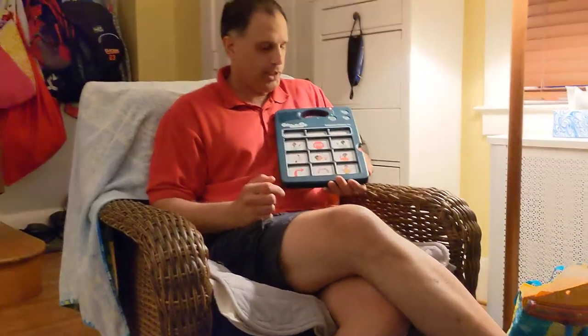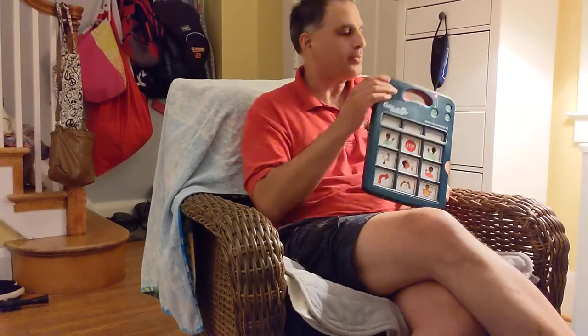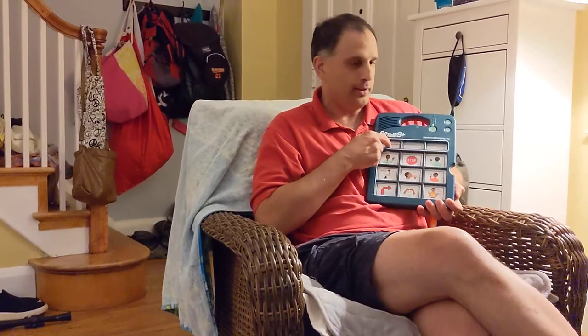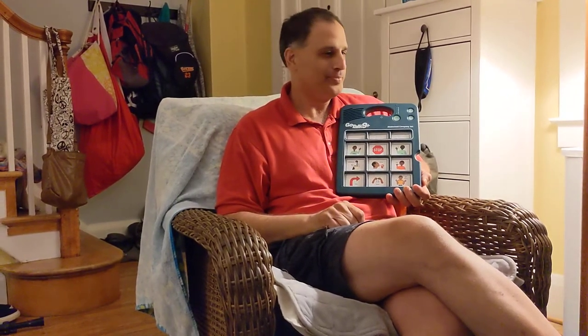So, here's my new message: "Hi, this is a new message." Did you see the red light was blinking while it was recording my voice? I pressed it again when I was done to stop recording. Now I'm going to go back and press the record button again to turn off the recording feature. So now, if I press this button: "Hi, this is a new message." There's my message.